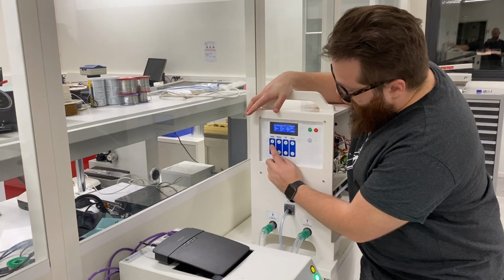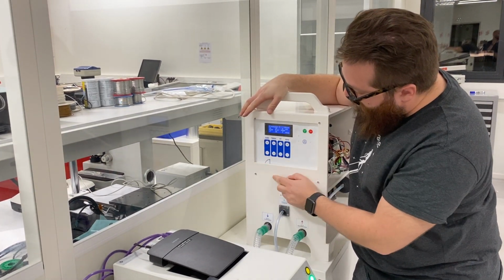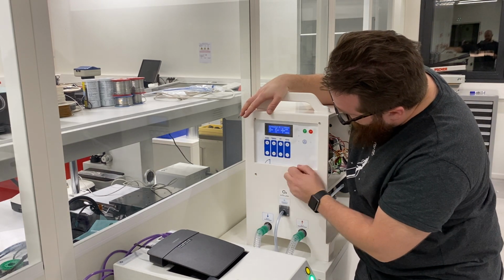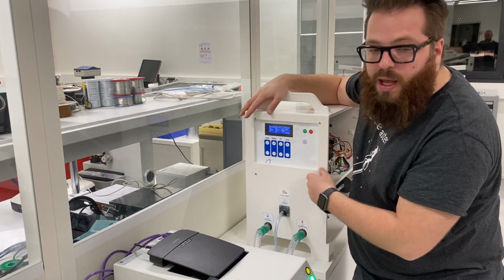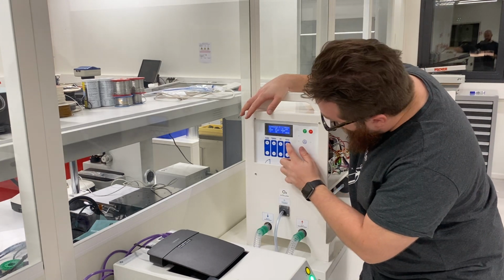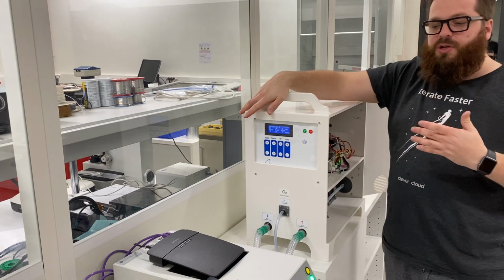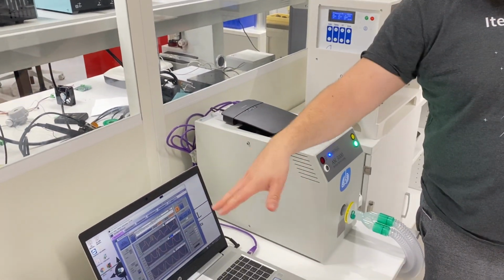You can configure the volume you give the patient, and the plateau we will need to reach. It can be higher, it can be lower. You can have more positive expiration pressure, or you can have a higher number of respirations per minute. And there you can see everything is changing accordingly.